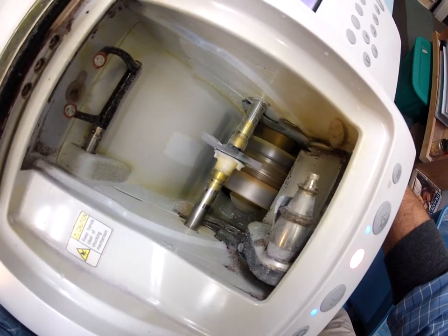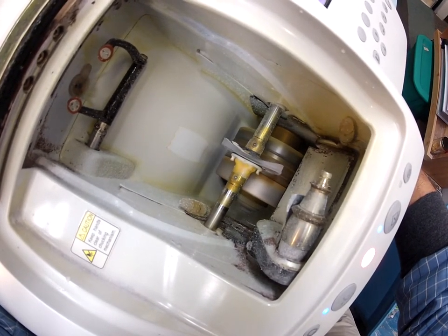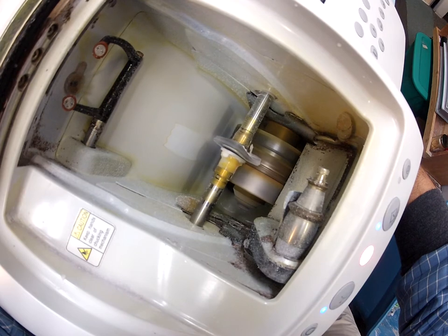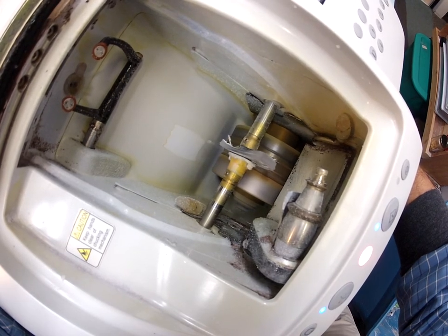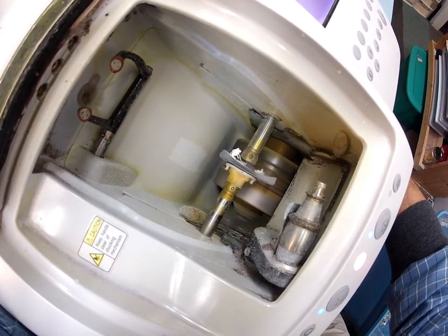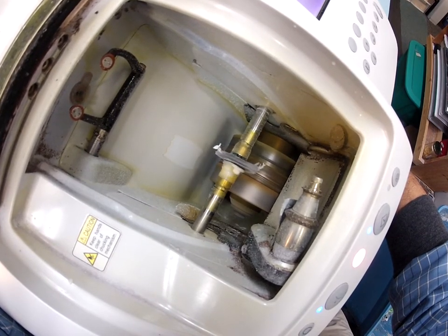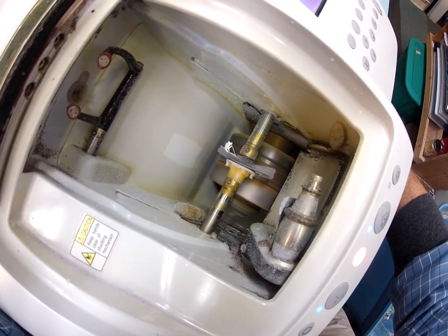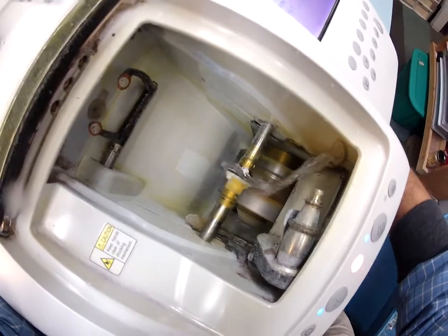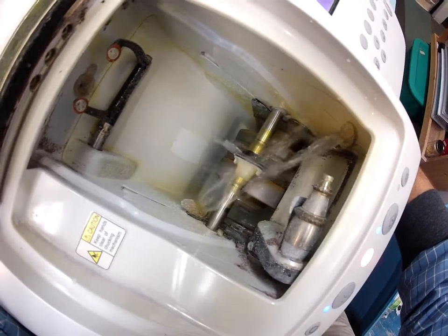You'll notice it's still flat around the edges, so now it's going to put the bevel on there so it stays inside the frame. It's bath time — the lens is getting a bath. It needs it too.